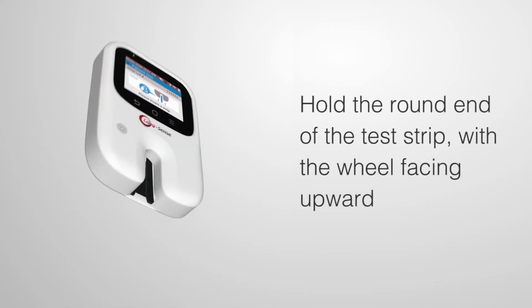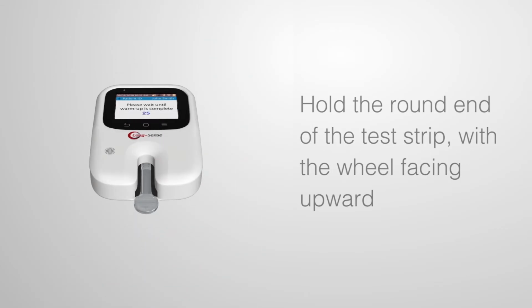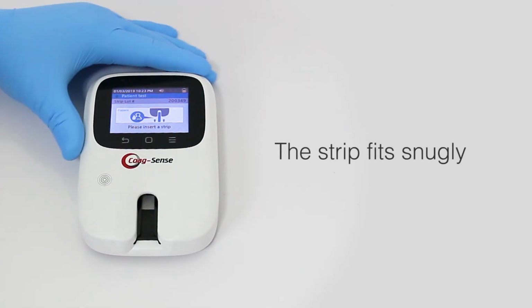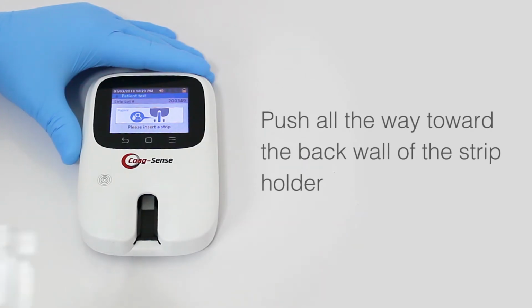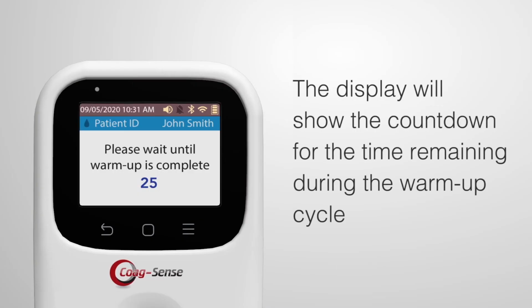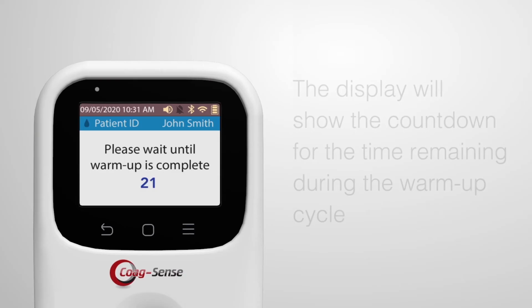Hold the round end of the test strip with the wheel facing upward. Gently push the strip completely into the meter. The strip fits snugly and should be pushed all the way to the back wall of the strip holder. The display will show the countdown of time remaining during the warm-up cycle.